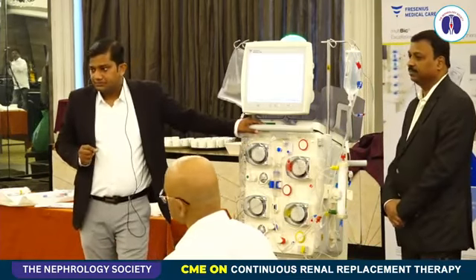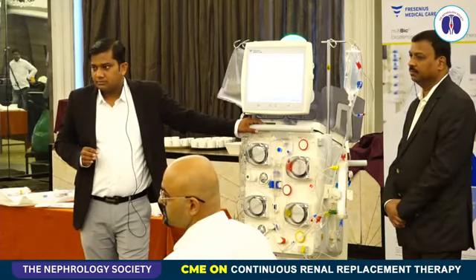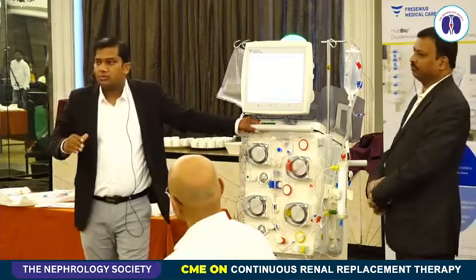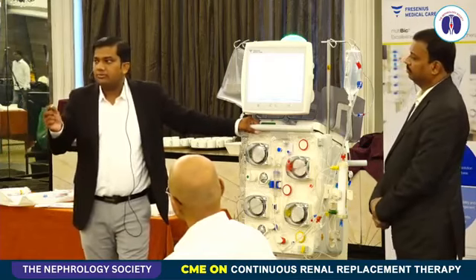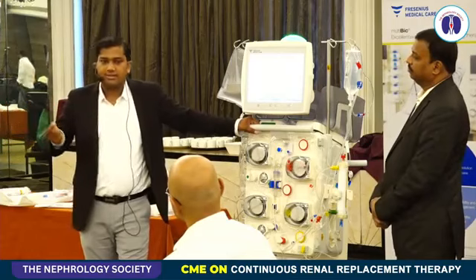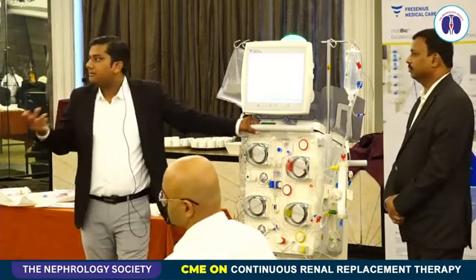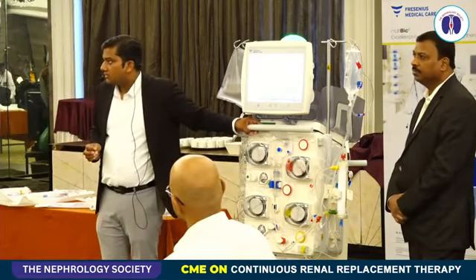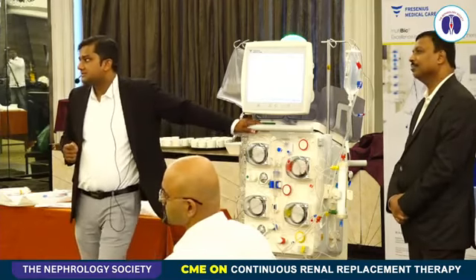So both the bags, dialysate bags and replacement bags, at the same time? It's up to you again. Let's say you are keeping more dialysate and less substitute. You want more diffusive clearance, less convective clearance. You are keeping 1.5 liter dialysate and 600 ml substitute. So the bag which has more consumption will empty more. Sir is asking whether you can utilize the same bag for dialysate as well as replacement. Is it okay? So that is for a heparin CRRT.